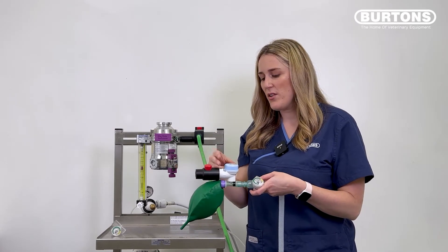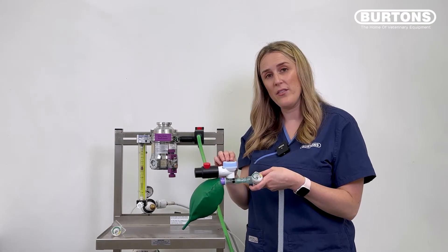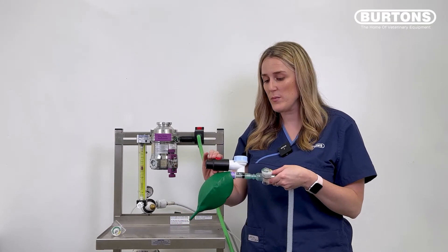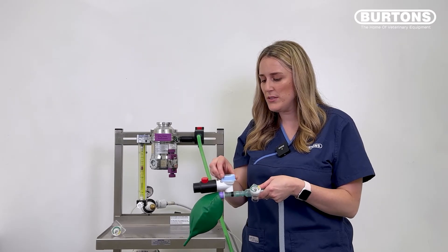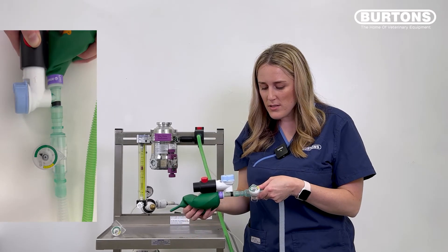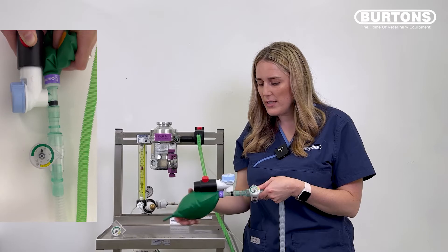In this instance, I'm just going to close the APL valve because I'm holding the breathing system here, but you can use the button as well. So if I close that valve, deliver that breath, release and open.